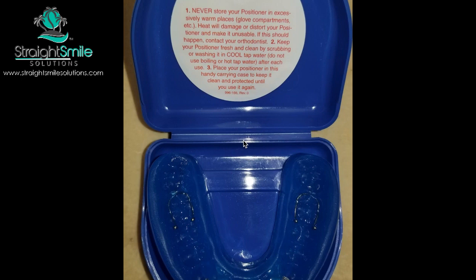Today we're going to talk a bit more about positioners. This positioner I'm showing you is made by TP Orthodontics — this is a fully custom positioner. You'll send in upper and lower impressions or scans, a bite, and some photos. It's meant for really minor imperfections — I'd say less than what you'd do in six to eight aligners worth of movement — just to close a few spaces. If you're getting frustrated finishing a case, whether braces or aligners, and you just want to get it done fast and cheaply, this is the best way to go.